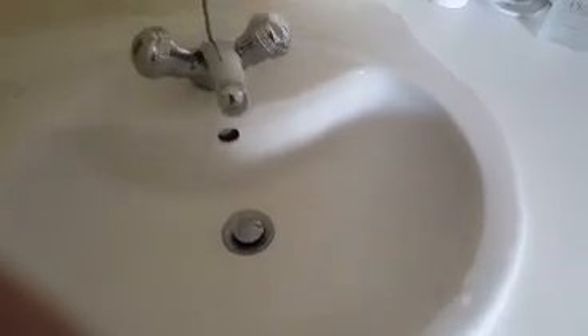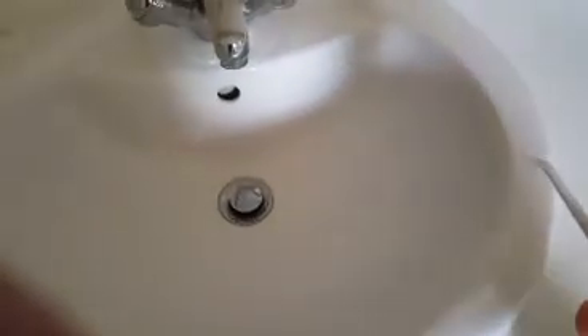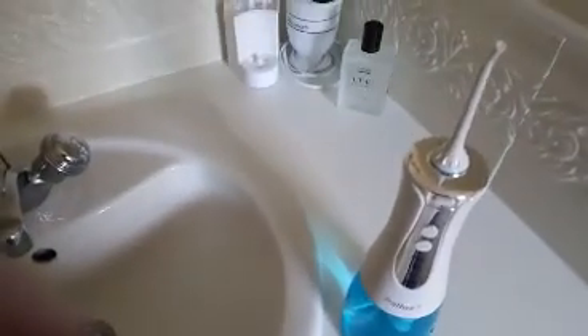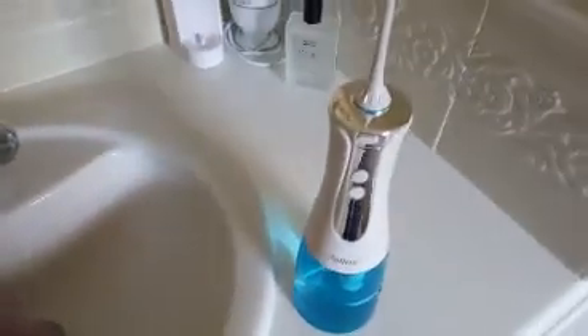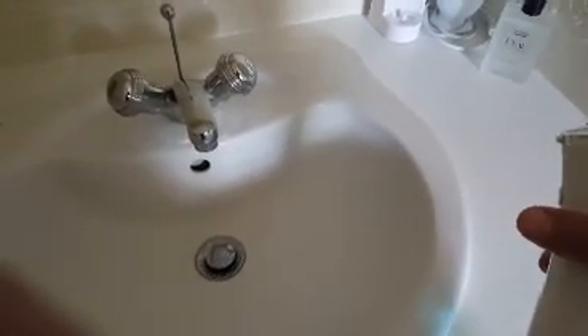On normal mode, as you can see, it is quite a high rate of water ejection from the nozzle — even though it says normal, it is quite powerful. Anything stuck in your teeth is going to be very effectively removed. I've tried it two or three times already and it's very effective, even though it's a particularly funny sensation when you first start using it.